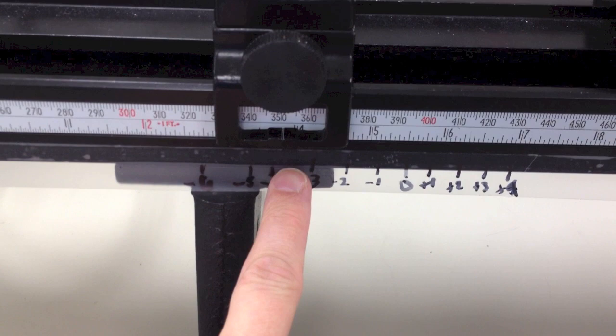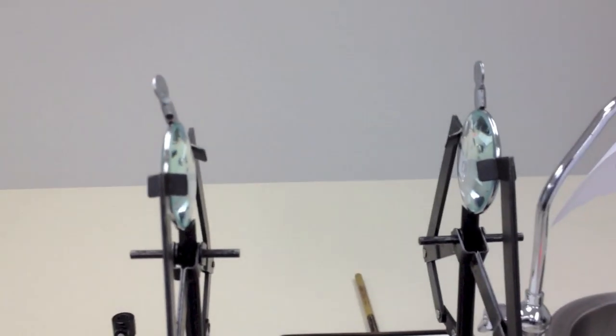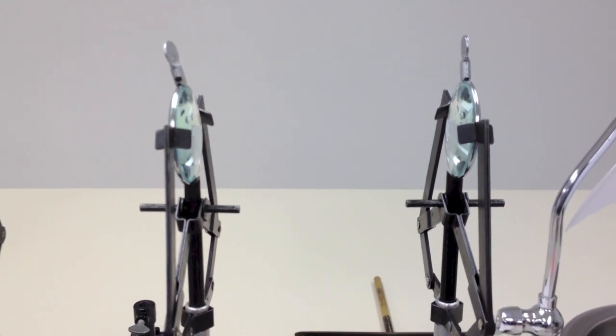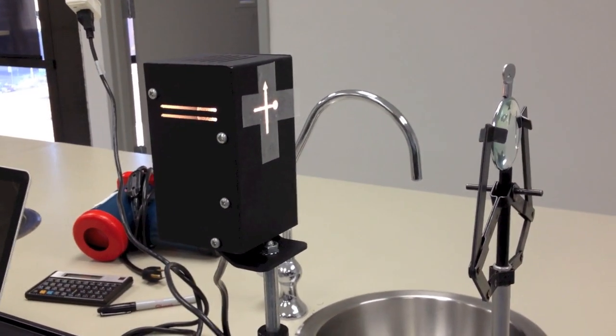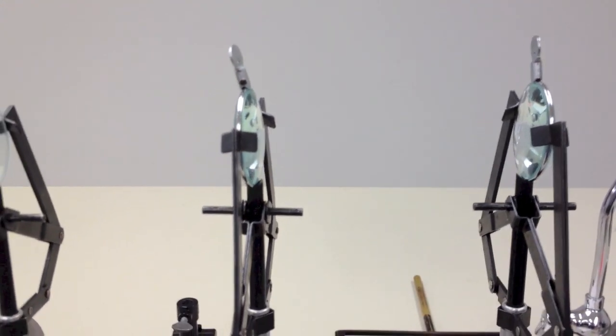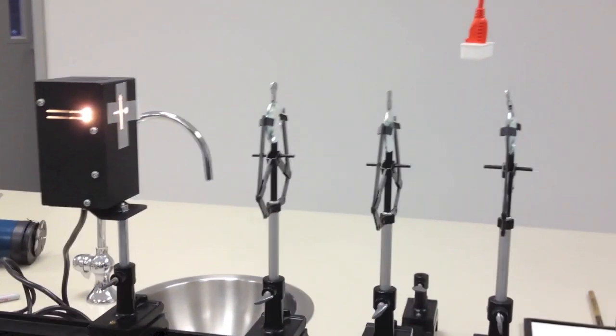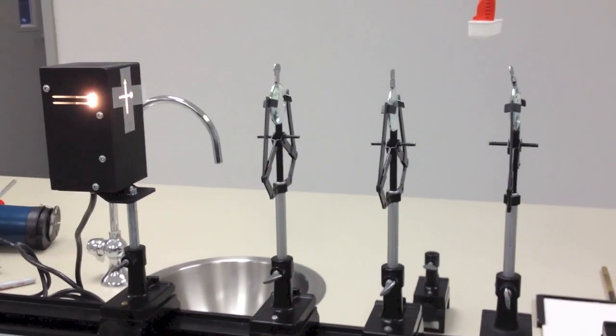There's a little bit of slop in the system. It's not perfect. The primary problem with this bench setup is that our telescope is not accurate enough. And what I mean by that is it's got a very long depth of focus, meaning that I can move the target back and forth a few millimeters before I really notice any blurring over here when I look through the telescope. And the real lensometer has a very short depth of focus. So if you're off even less than a quarter of a diopter, you're going to get a blurry image inside the lensometer. But this is the basic idea. And just to kind of illustrate the basic concepts of what's going on inside the lensometer, you're going to set this up on the bench for the lab.